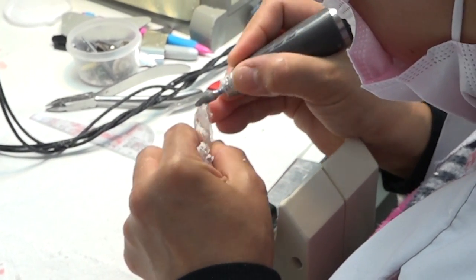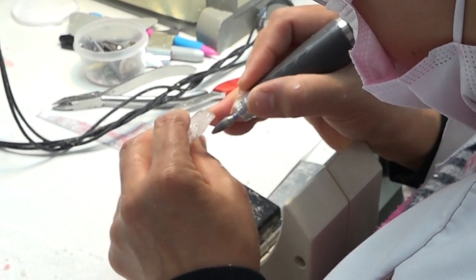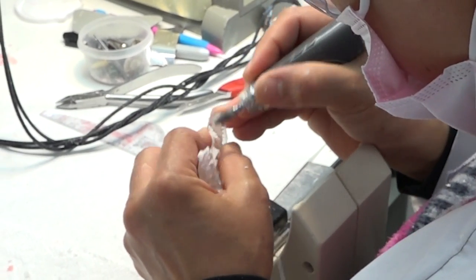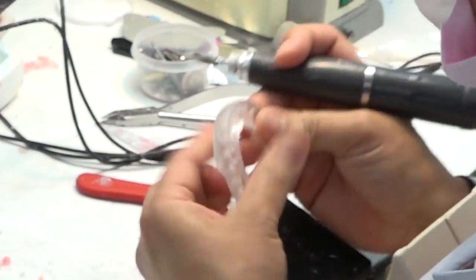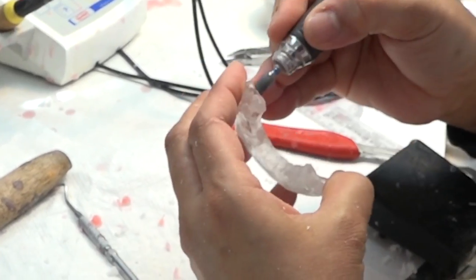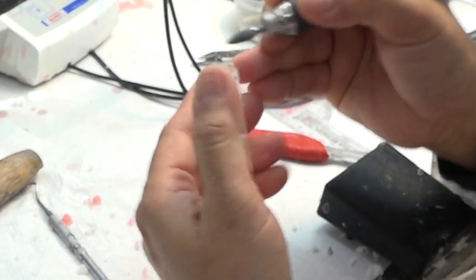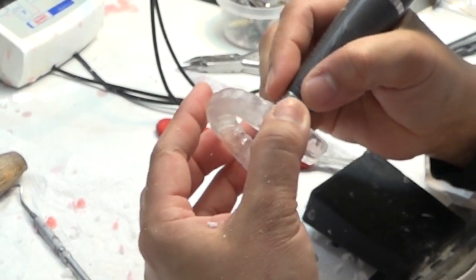Using a finer tool, trim the mouth guard to the right shape to prevent it from feeling too bulky in the mouth. Trim areas that are too tight. Trim the interior area to loosen the fit enough to be taken in and out of the mouth comfortably.